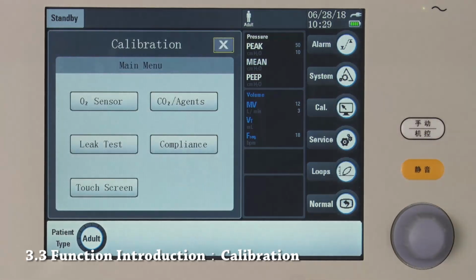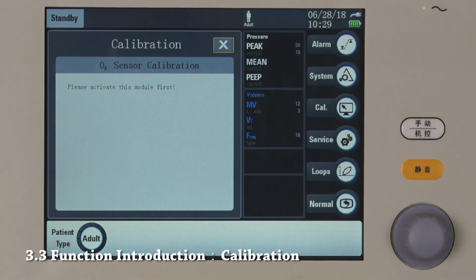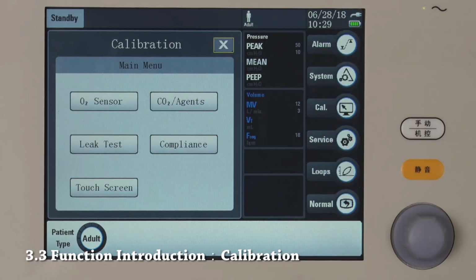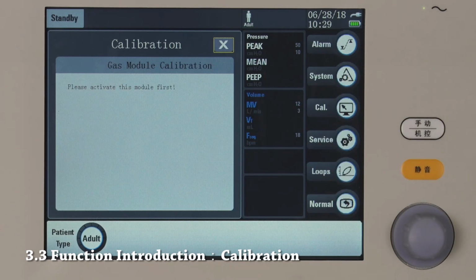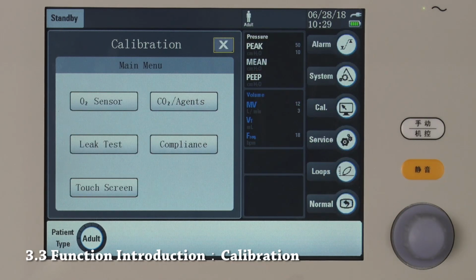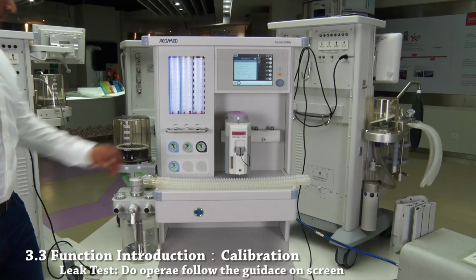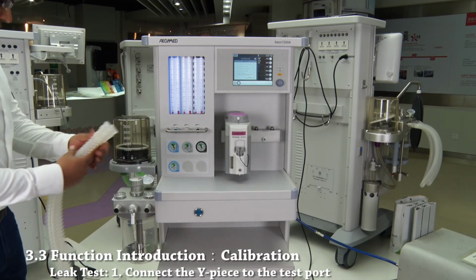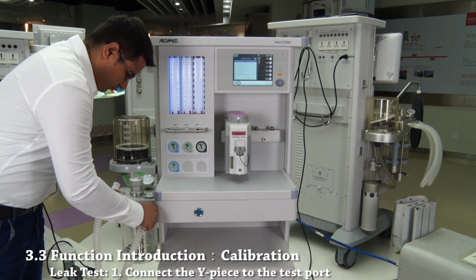These are calibration options. In order to calibrate oxygen sensor, it has to be activated. To calibrate CO2 sensor, it also needs to be activated. Press here to perform leak test. Please follow the instructions on the screen. First, connect the Y piece to the test port.